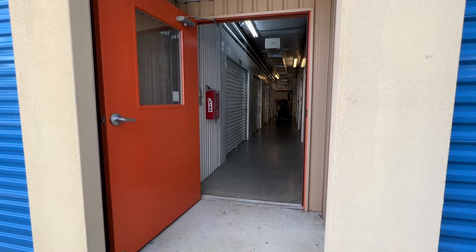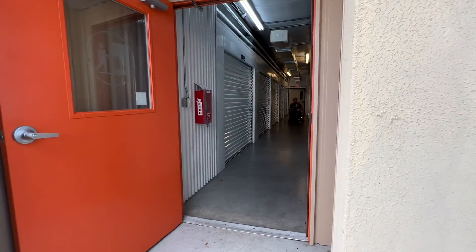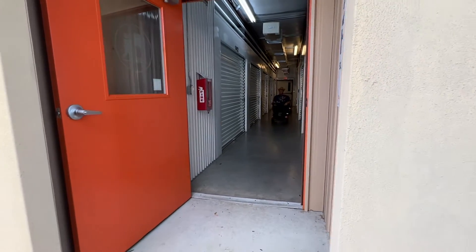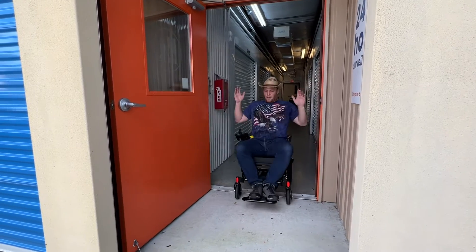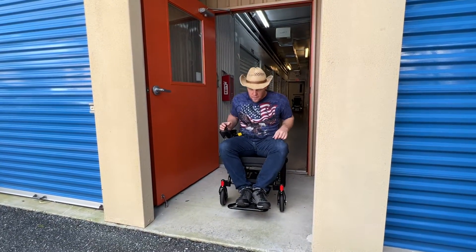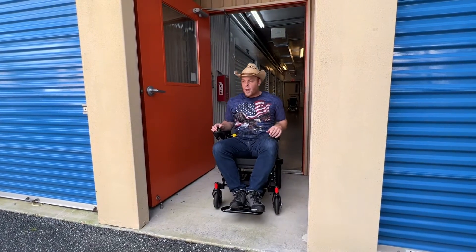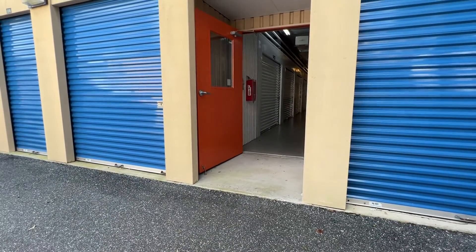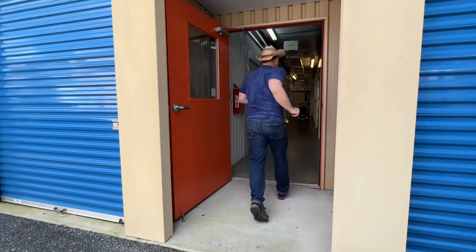More showing than telling. We've got the Eagle right here. Full throttle, and we let it go. The Eagle looks like we're right at the doorstop — full speed to complete stop in less than five feet.